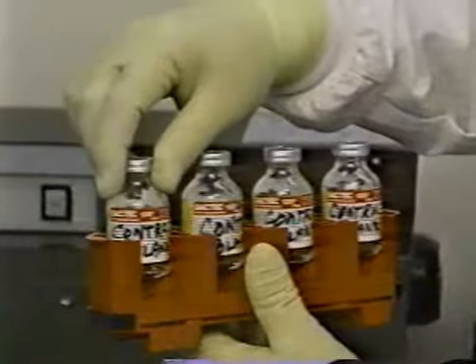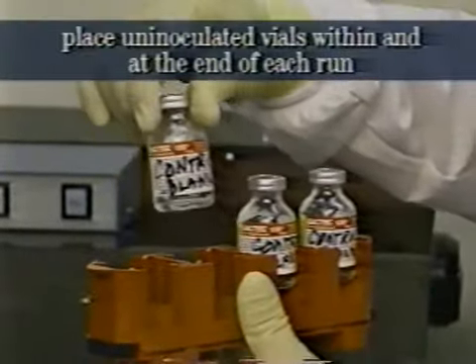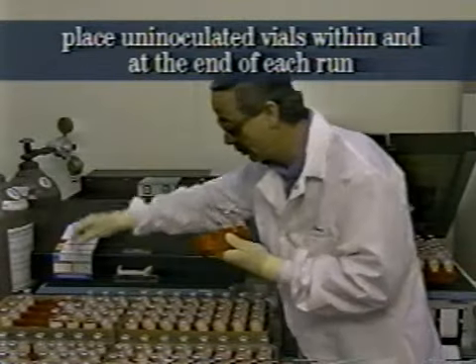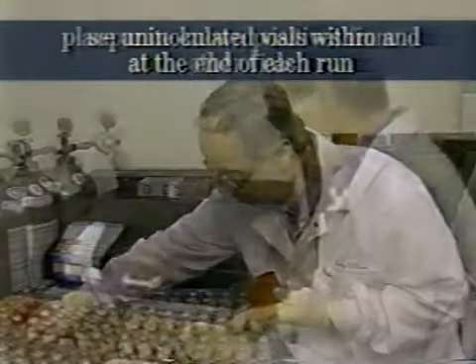Other suggestions for the prevention and early detection of problems when using Bactec include: place 1 or 2 uninoculated bottles of medium within and at the end of each run to detect any carryover of organisms and to allow a final heating of the needles.